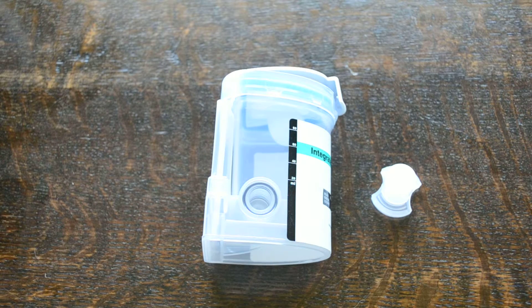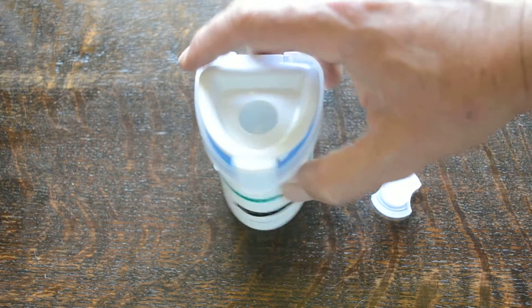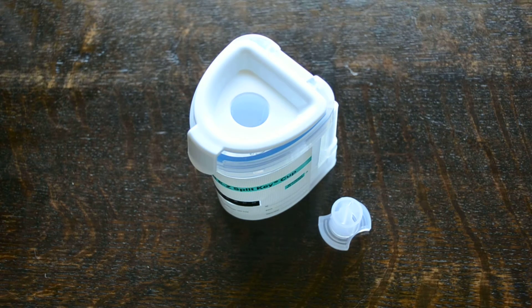The EZ integrated Instalert product really does have the design edge in terms of no decanting of urine, no putting it into another sample container to be sent to a laboratory for confirmation. This design incorporates your ability to take the sample and get point-of-care immediate results.